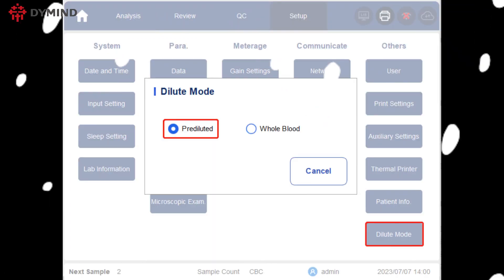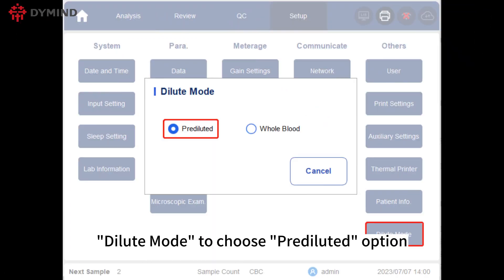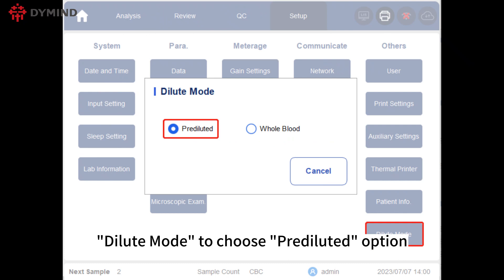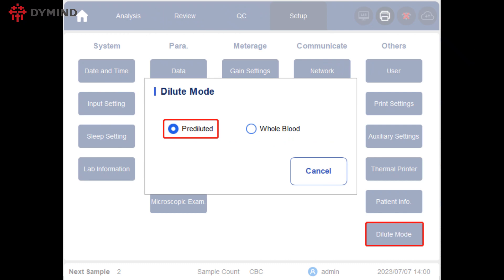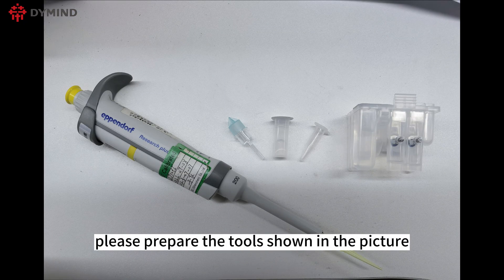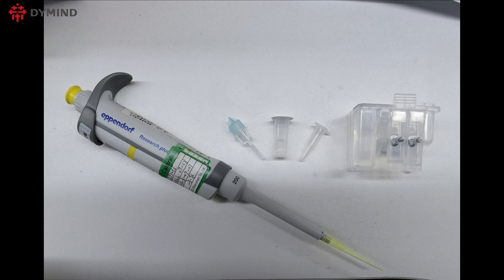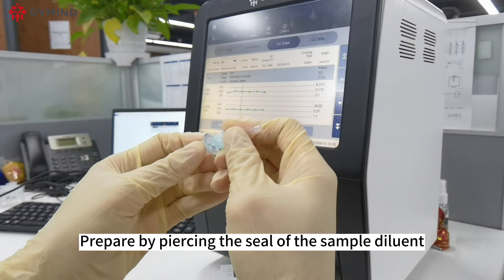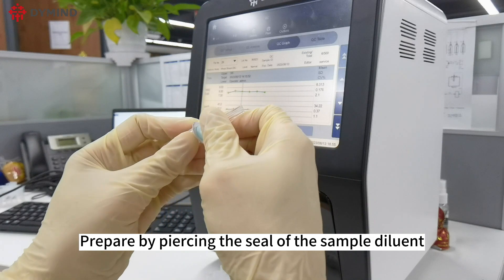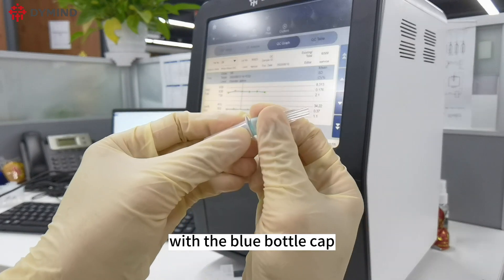Please click Setup, then Dilute Mode to choose the Pre-Diluted option. Please prepare the tools shown in the picture, then prepare by piercing the seal of the sample diluent with the blue bottle cap.